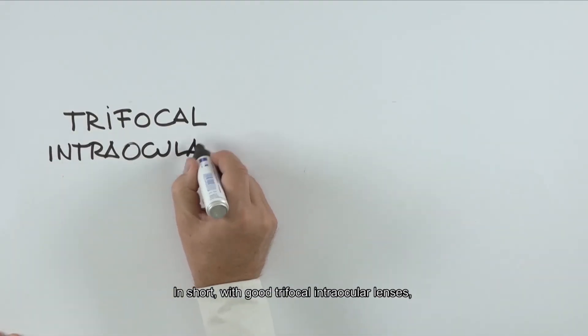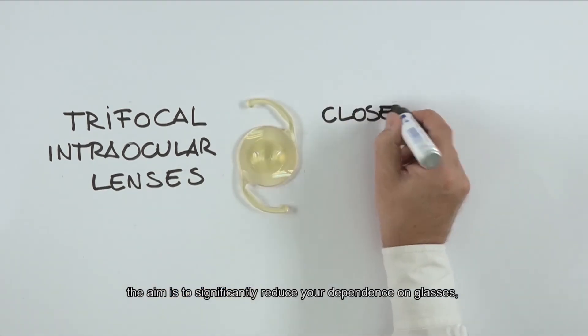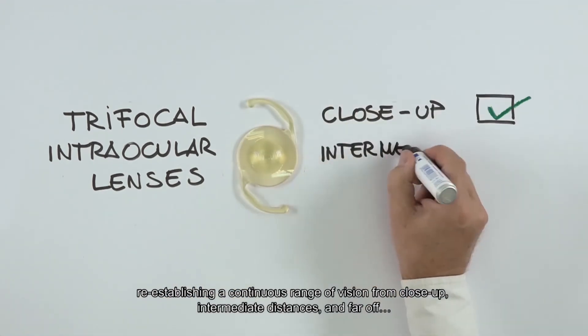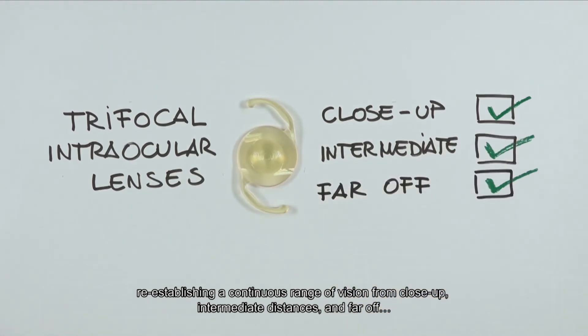In short, with good trifocal intraocular lenses, the aim is to significantly reduce your dependence on glasses, re-establishing a continuous range of vision from close up, intermediate distances and far off.